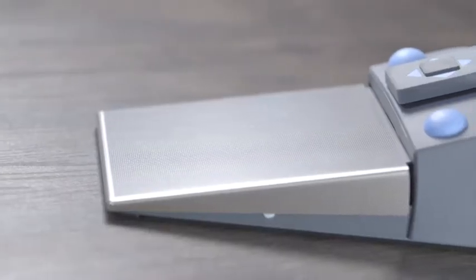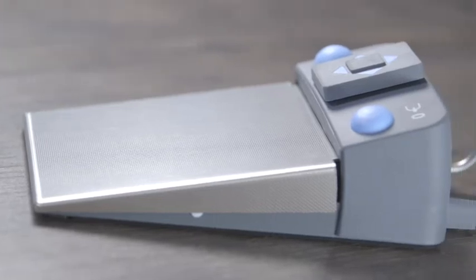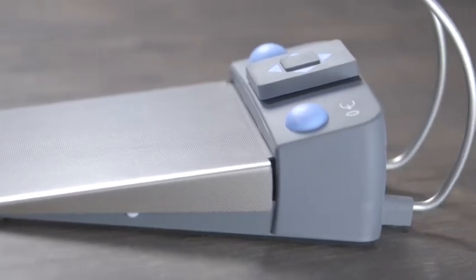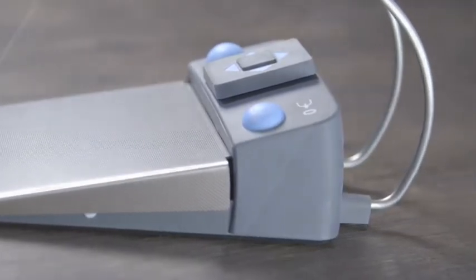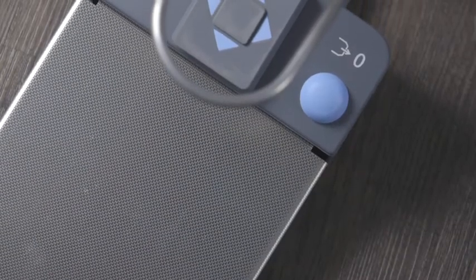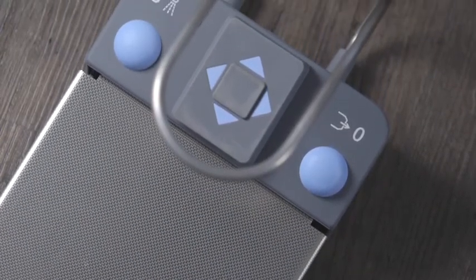In this video, we show you how to operate the treatment center with the wireless foot control. The wireless foot control must be assigned to the treatment center by registering it.